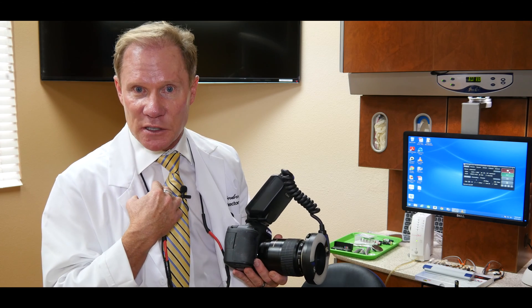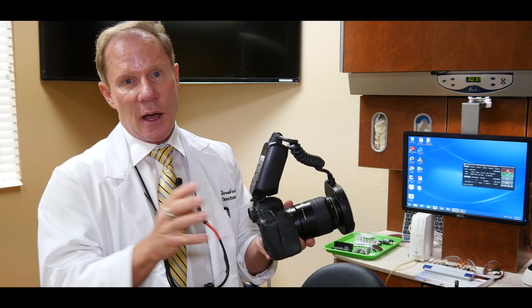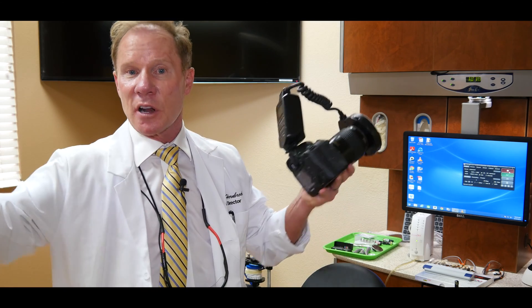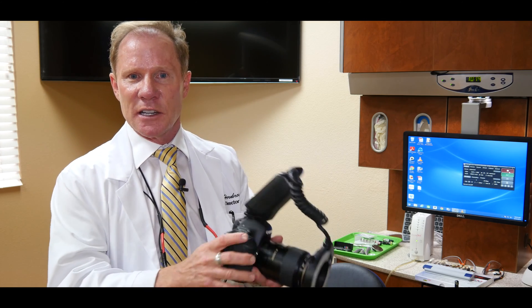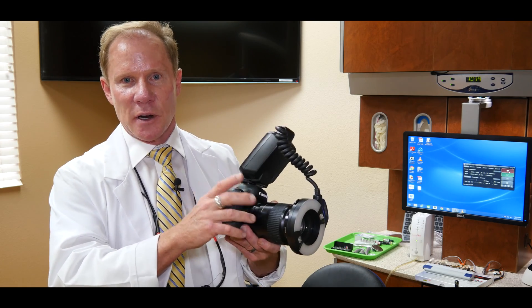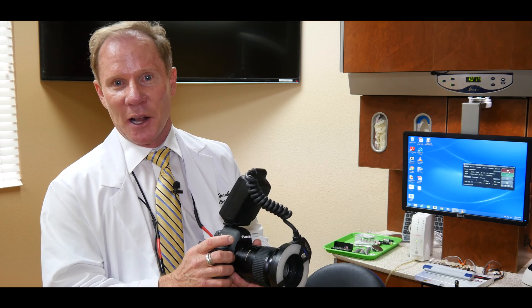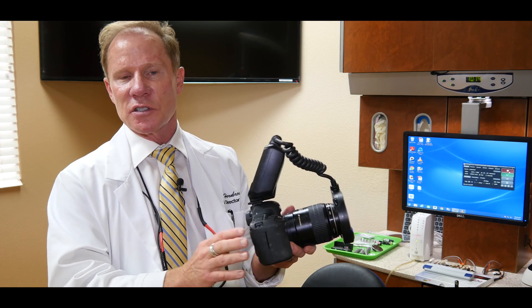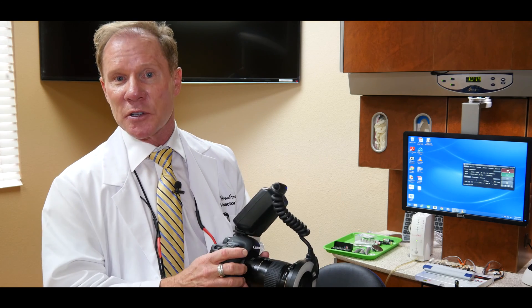When I'm taking full faces, I set my f-stop at 9. That might be different from one office or operator to the next based on how much ambient light there is, so that's something you may want to play with. The nice thing about digital is you take your photo and have an instant image. Most of my colleagues are using anywhere from 7 to about 11, and I shoot at 9 in my particular office.